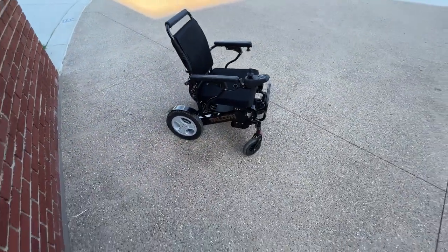We have excellent tread, so this is a great outdoor and indoor chair. It has flat-free tires which is exceptionally useful because sometimes people are driving outside and drive over things that are sharp and they don't want to get a flat. The front wheels are angled so they don't hit the footrest and knock your feet off. And of course we have the coveted in-frame batteries.